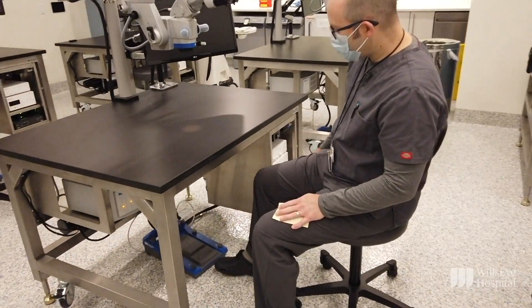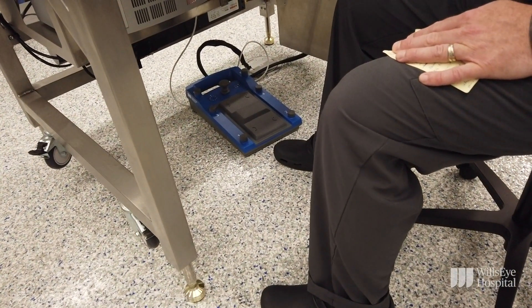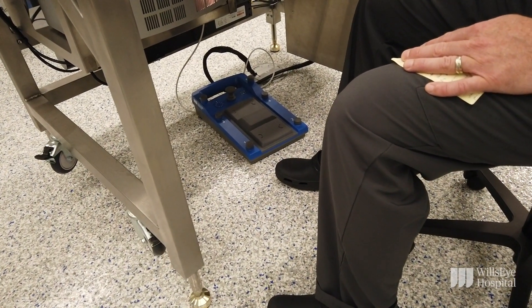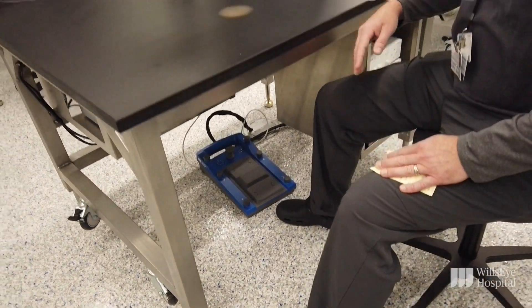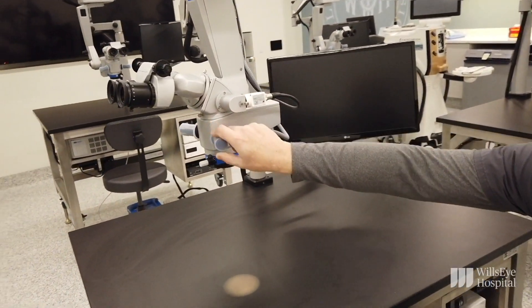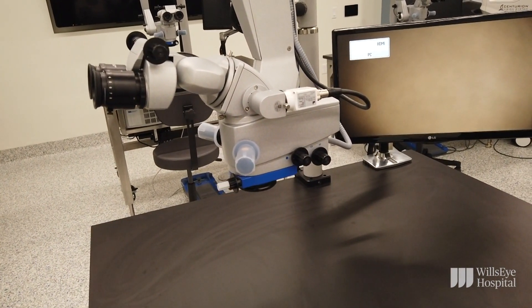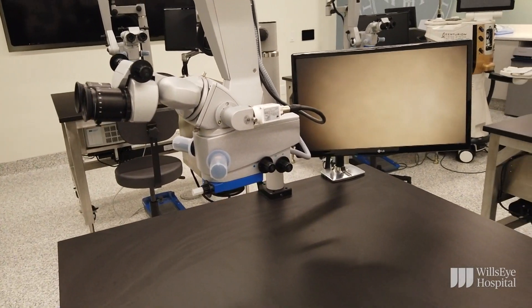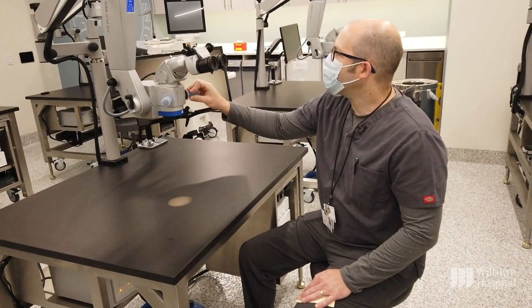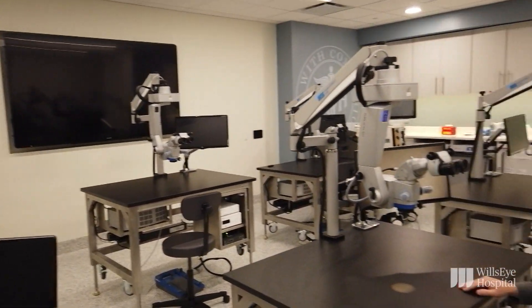Remember that when you're adjusting the microscope, it is linked to the table, so you have to adjust it up appropriately. The foot pedal is set up similar to the operating room: foot pedal button number one turns the light on; buttons five and six increase or decrease the light intensity; and you have your standard focus, mag, and XY movement. There are also various shutters and filters on the microscope itself, which can be used for different purposes, whether it's a slit beam or a blue filter.